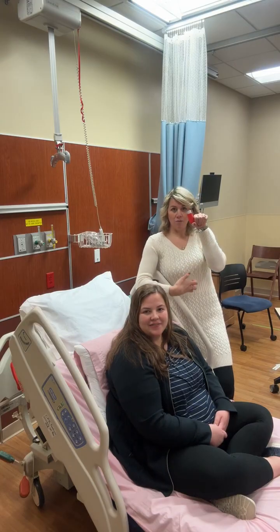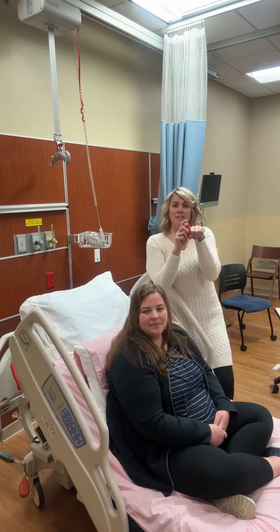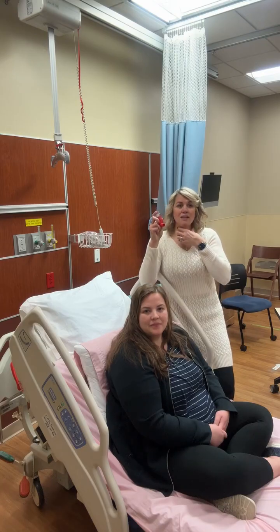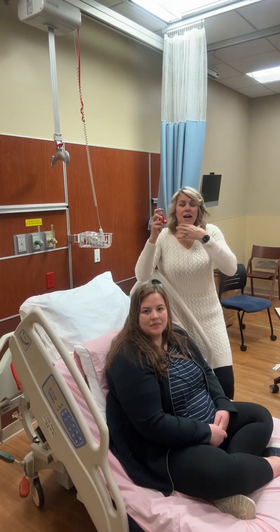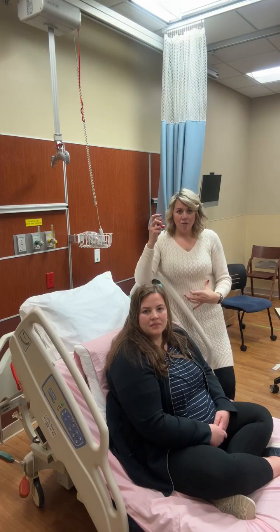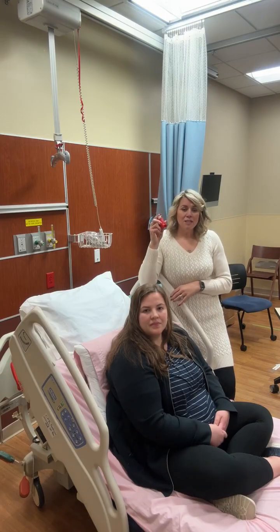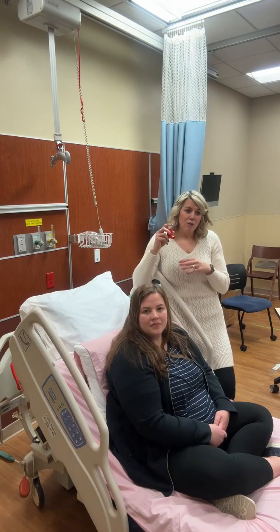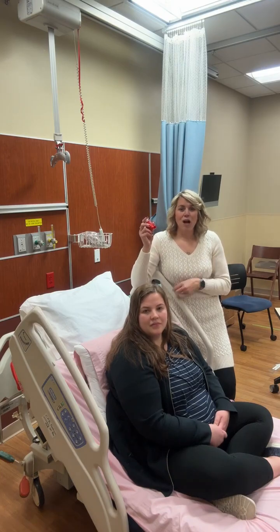Nothing came down, okay? The reason is that I took a breath right when I sprayed it, which means I closed my airway and wasn't able to get it to come all the way down. What you're supposed to do is this fancy thing called a coordinated breath hold, and rarely do people get told to do this properly.